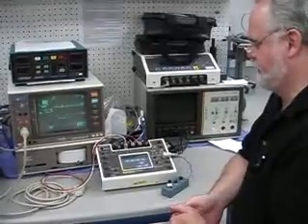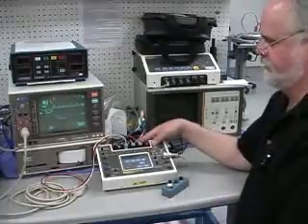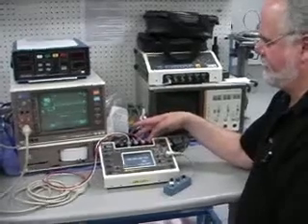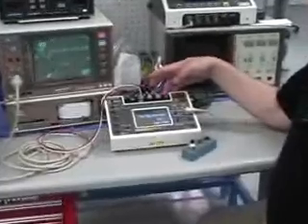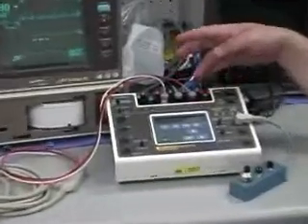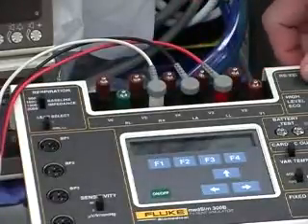This is one of our workhorse simulators that we've had for a while. The medsim300B has a full 12-lead, 10-electrode system ECG. This is independent output ECG, which allows you to simulate physiologically very accurately the true body's conduction. It uses analog multiplexer circuitry so that there are actually 9 independent signals referenced to RL. So very, very accurate for doing arrhythmia simulation.